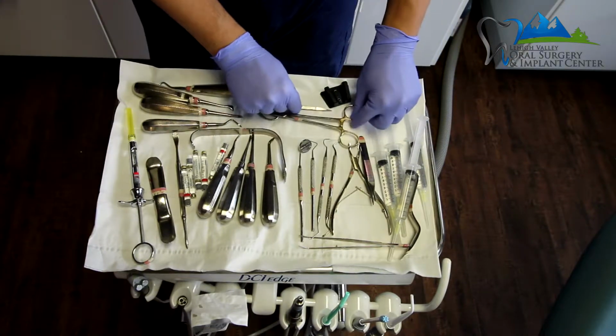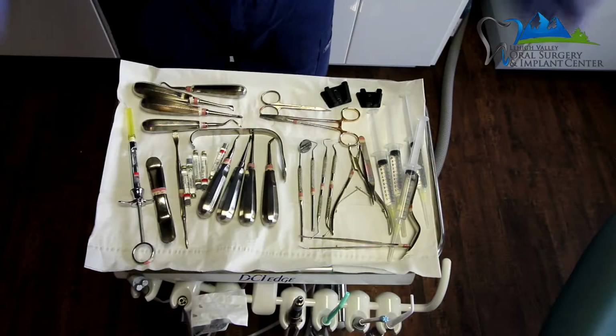Now again, it is very important to set it up exactly the same way for every single procedure so that the surgeon knows exactly where to reach and where to go for that specific instrument. It's also important not to leave off anything so that if something is needed for the procedure, it's actually there on the tray. The last thing, which is not really an instrument, is irrigation.